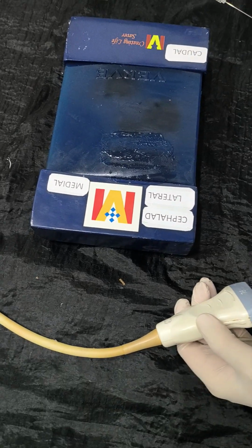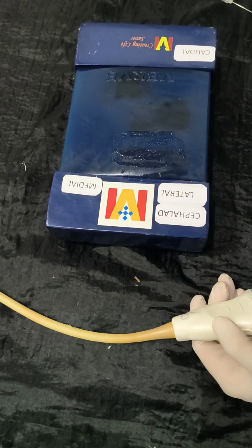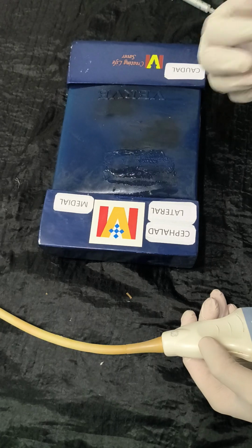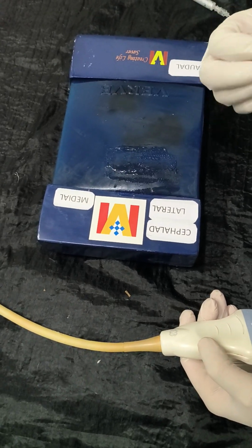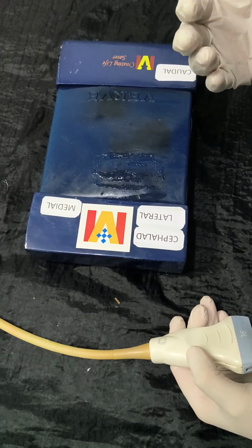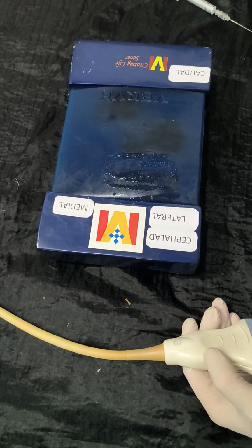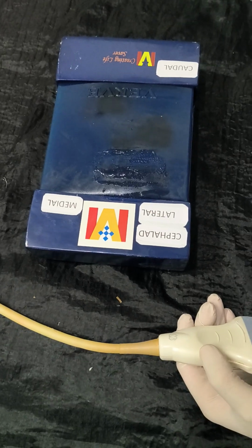So today I am demonstrating our regional block trainer, and this trainer is for target practice. Whenever we teach novices, we must have a fictional contract between the instructor and the candidate, because sometimes you don't see things which you routinely see in human beings. So you assume things, and if you both assume, then it will be easy to learn.